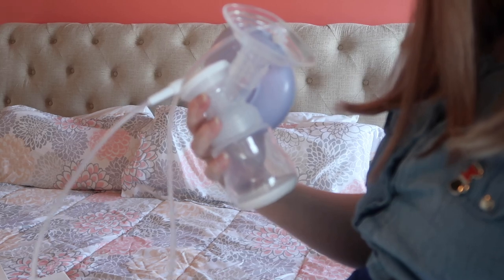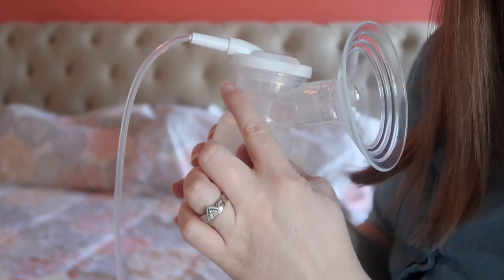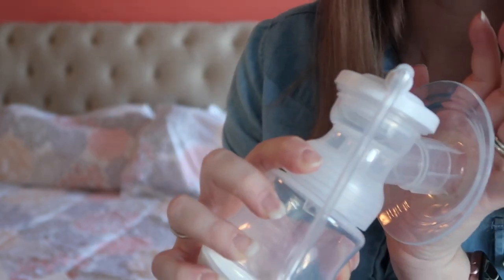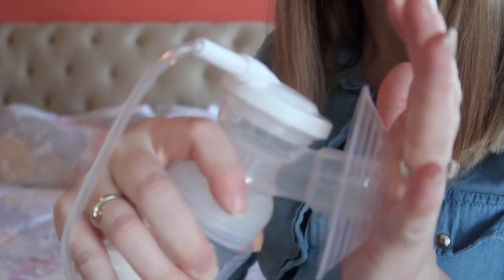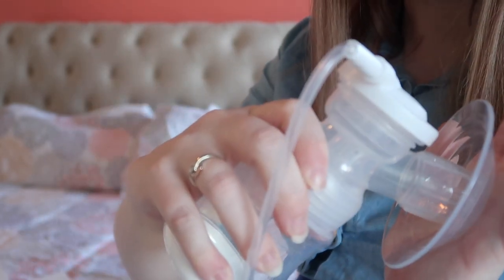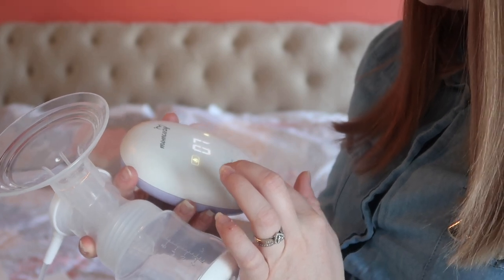Okay, I have everything hooked up. Let's try this out — hold for three seconds. I'm going to turn it up. You can actually see it going in here. That's on level seven; it goes up to 16. That's pretty intense. The higher you turn it up, the longer the suction sections are; the lower it is, the more frequent. It does make a noise, but it's not super loud — about what you'd expect.